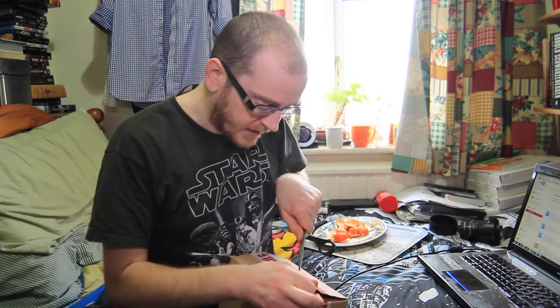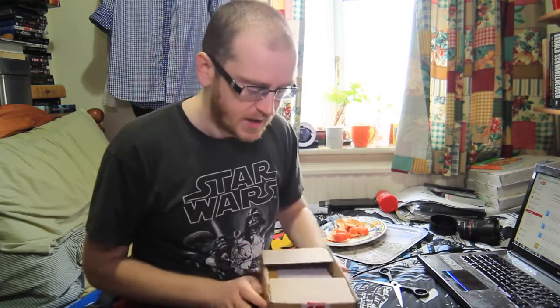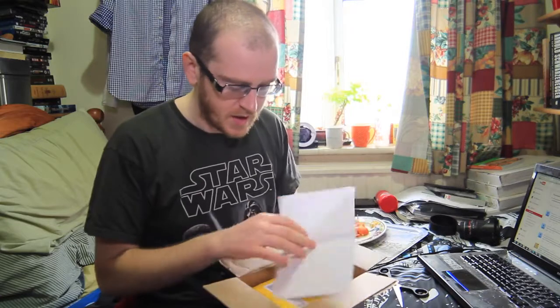I bought this with my own money — I haven't got it on the NHS or anything like that. It cost me about £130, which is about $200, and after that it's going to cost me about £100, or about $160, a month.